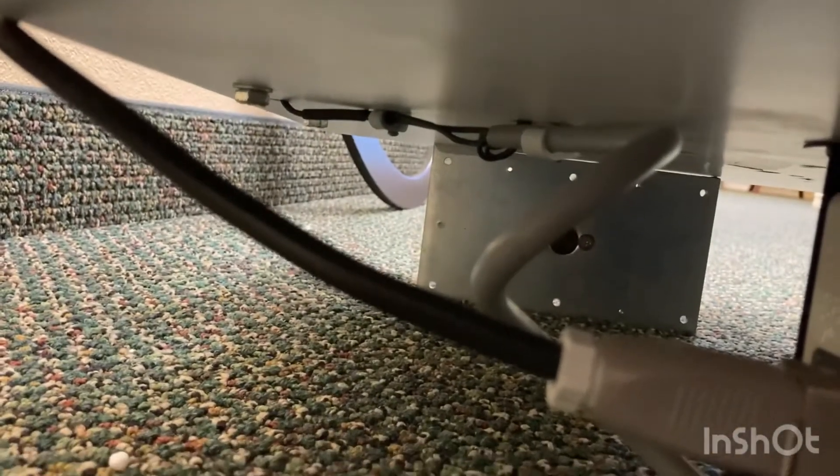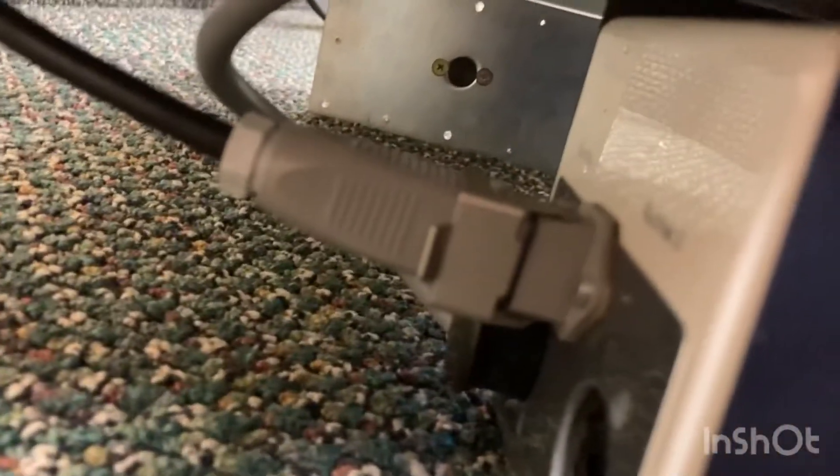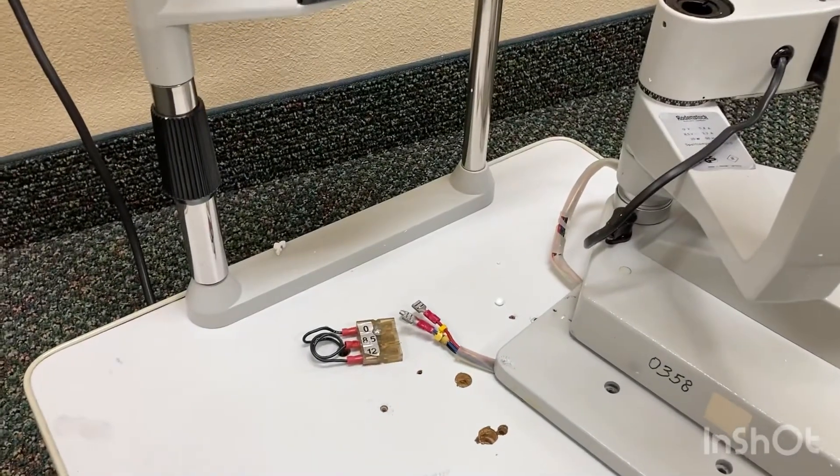Down into here it runs over into the gray cord and into the top. The bottom plug routes it up here to the top and into the wall — though you're not going to use a wall outlet. You're going to use the slit lamp stand plug, but it's a regular plug. Like it should be.